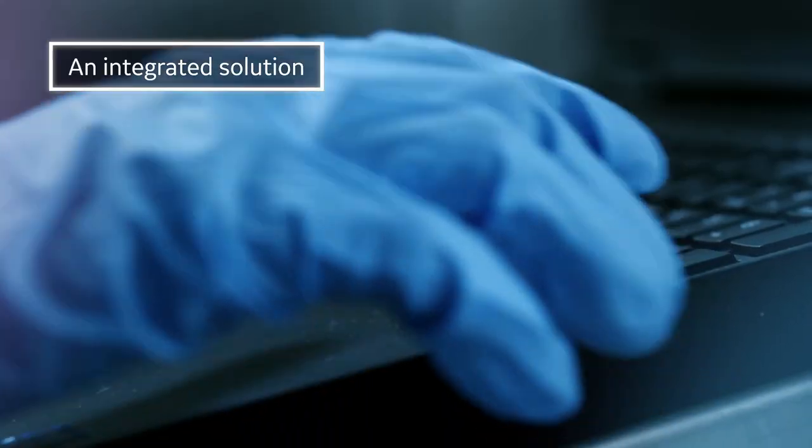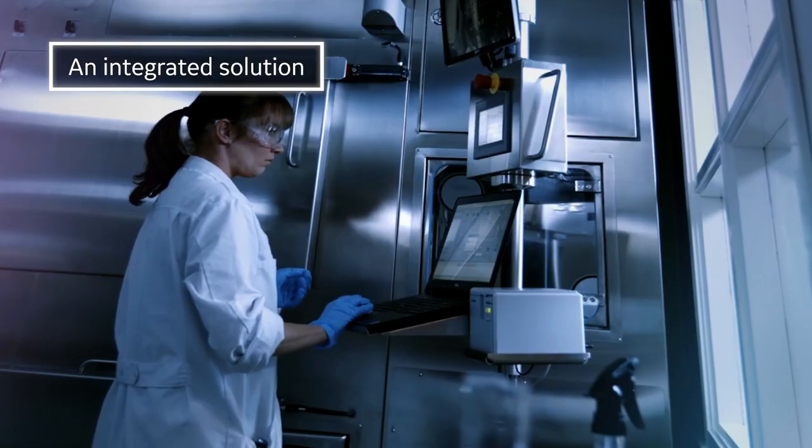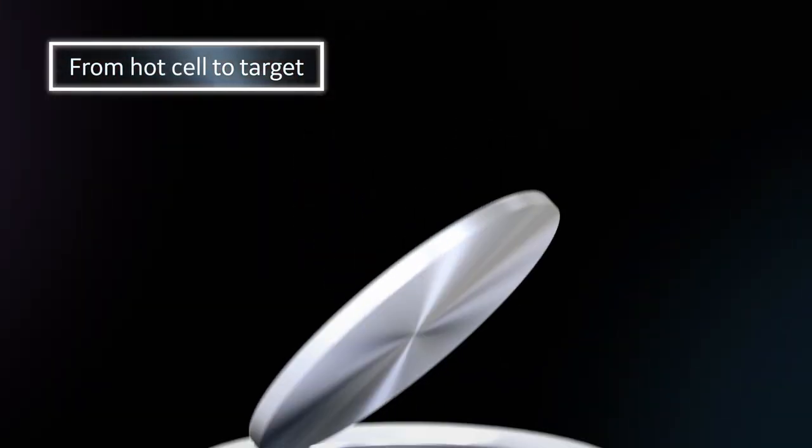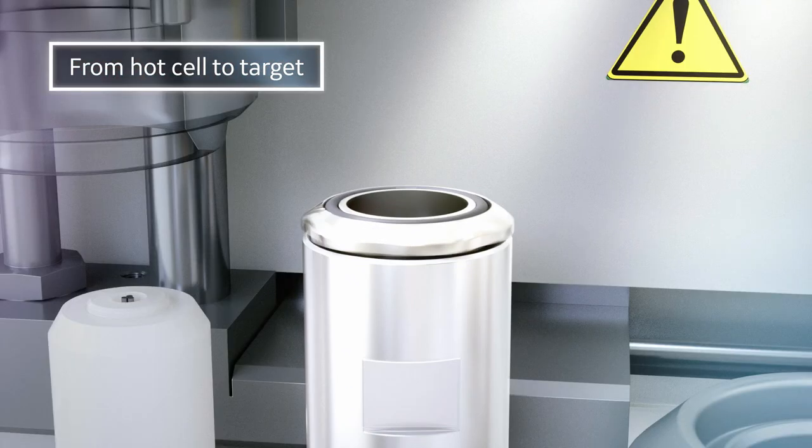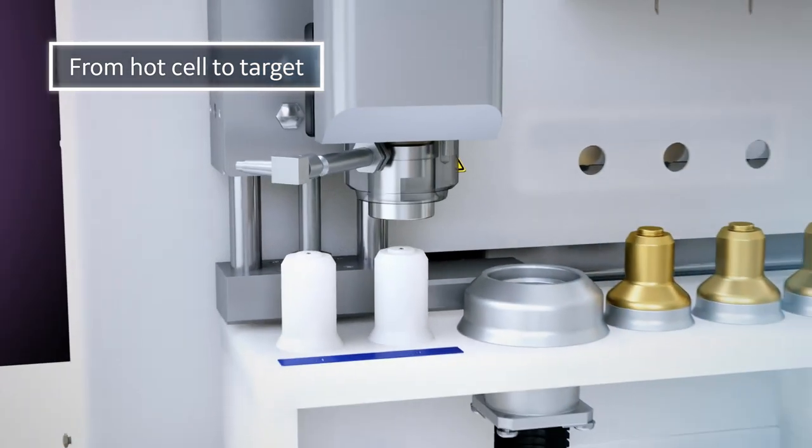In fact, solid target technology is now a one-person operation. It's as simple as dropping a pre-plated coin into a capsule and then letting automation do the rest.